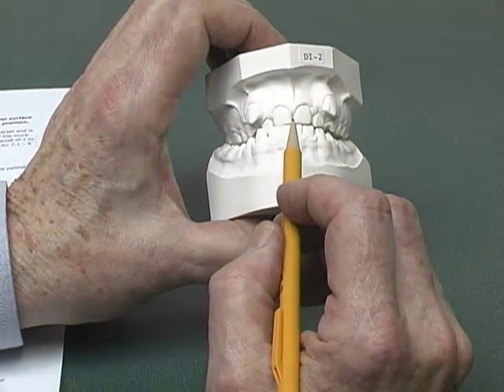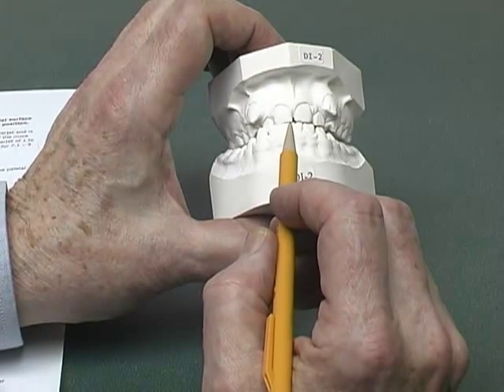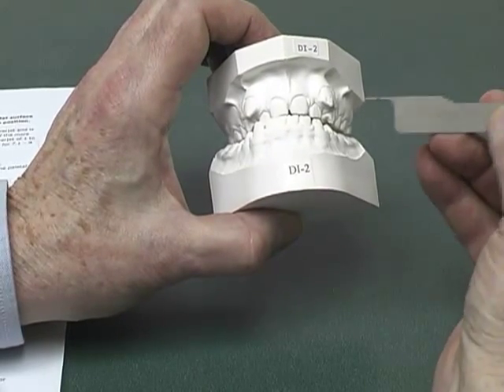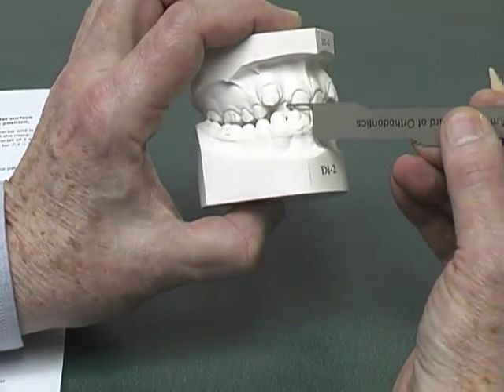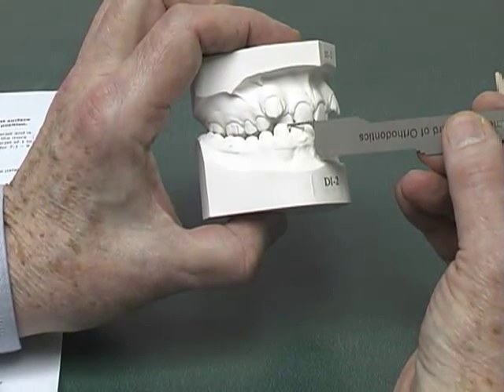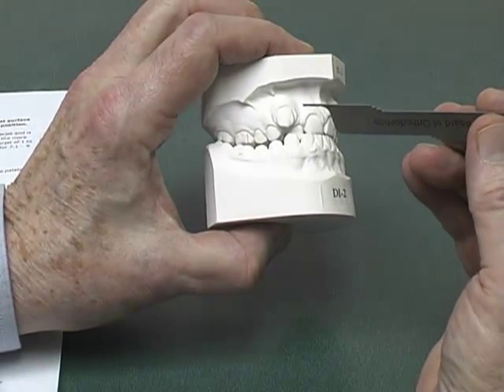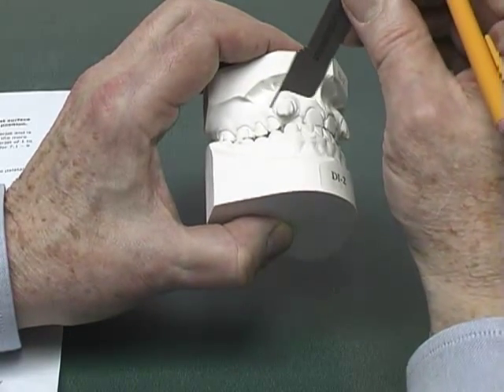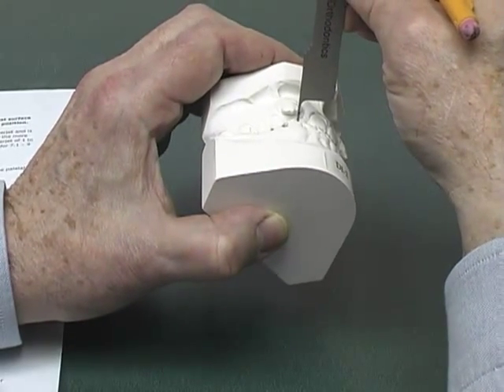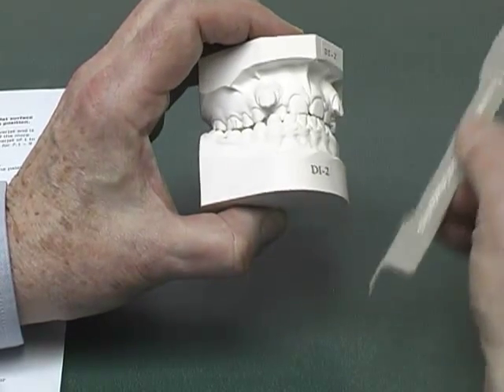Let's return to the overjet category we covered at the very beginning to discuss the negative overjet aspect of the category. This cast has the maxillary right lateral incisor in crossbite with the mandibular teeth. Measuring the amount of crossbite from the facial of the maxillary lateral to the edge of the mandibular canine, I obtain a reading of 2 millimeters, which scores two points on the negative overjet.